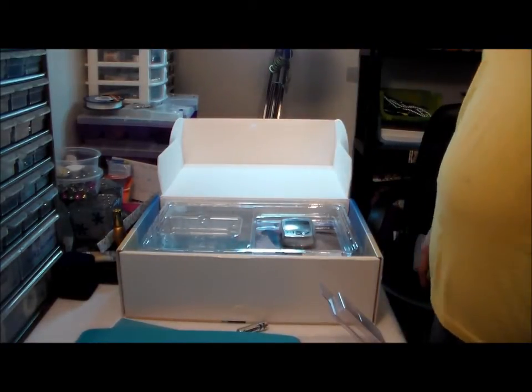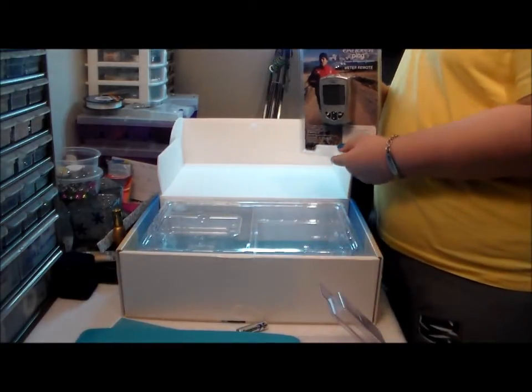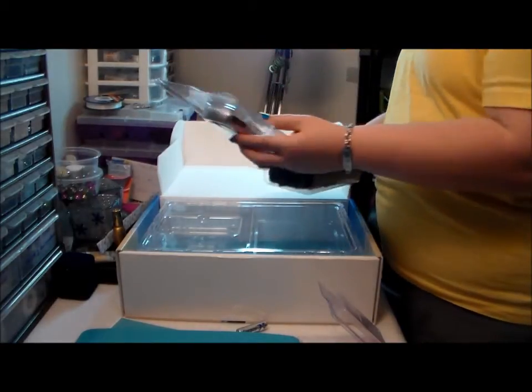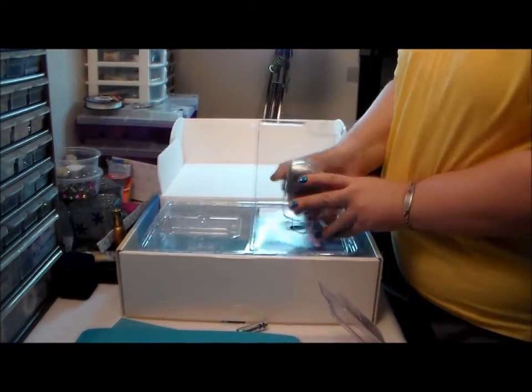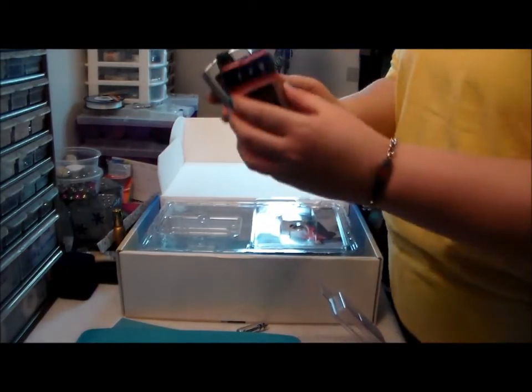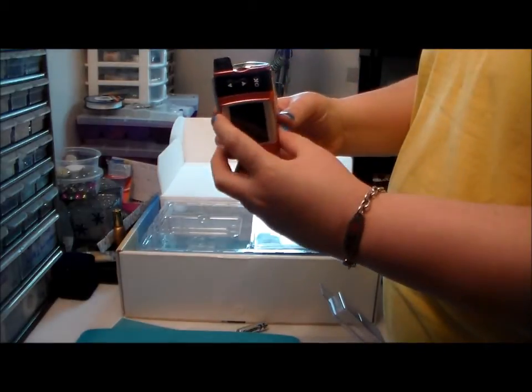I don't have any coins on me to open the battery compartment. Anyway, there's the pump, and here's the meter. Yes, these are really tiny — they're about the same width and length, just a little wider up at the top.